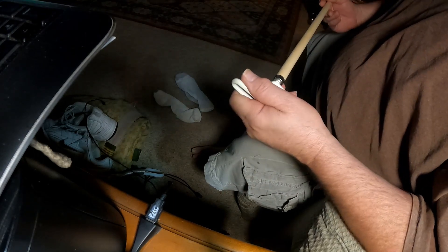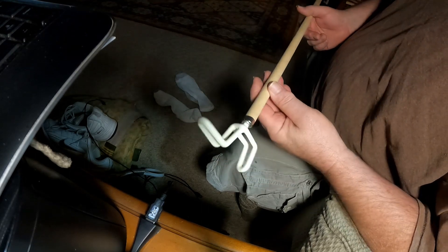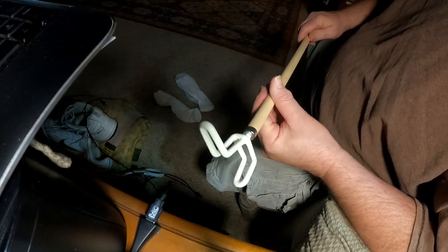In this video I'm going to show you how to put socks on when you can't bend over and touch your feet. There's a tool they make and sell at most medical supply stores, or you can buy it on Amazon — it's a sock kit, and this is one of the tools that comes with it.